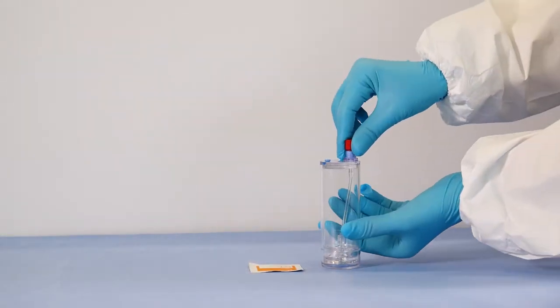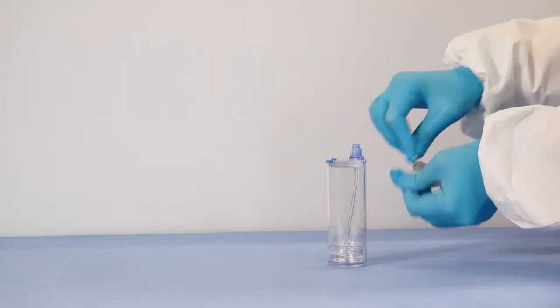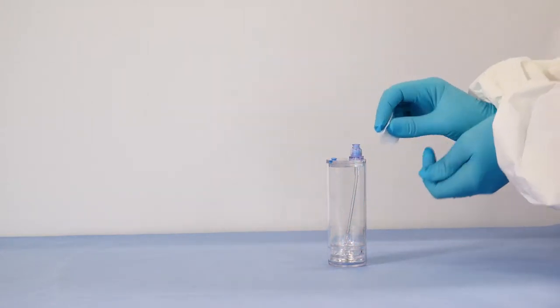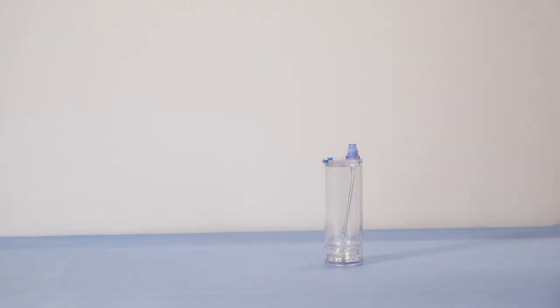To begin, remove the red cap from the needleless valve port of the device. Always remember to swab the port with sterile alcohol before and after accessing with a sterile syringe or cap.